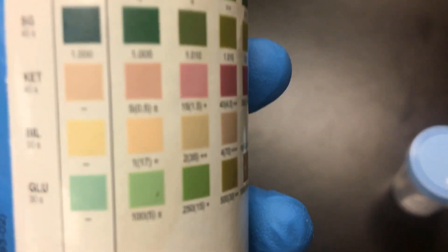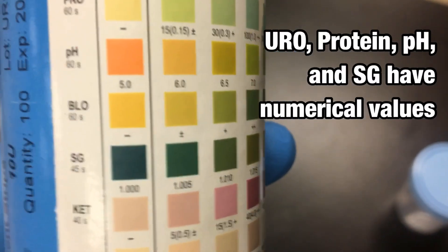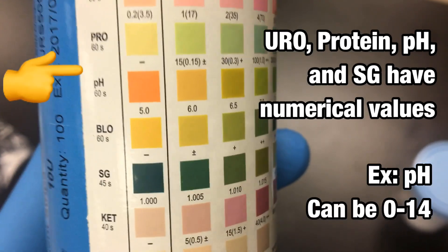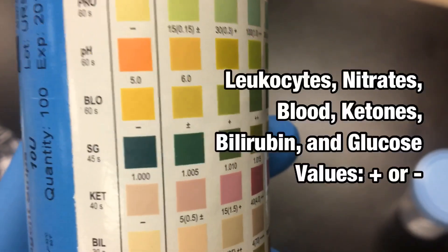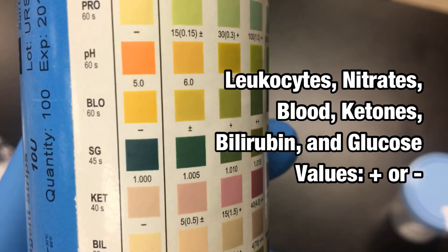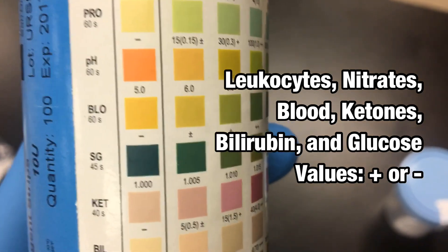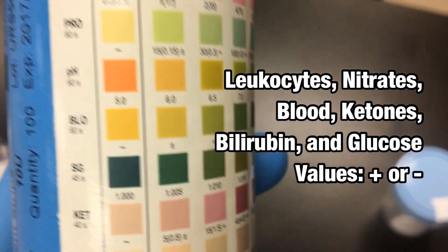Some of these have a number. For example, pH — we know pH can be 0 to 14, so that's going to give you an actual number. But something like blood is either just present or not present in the urine, and that's either a positive or negative test.